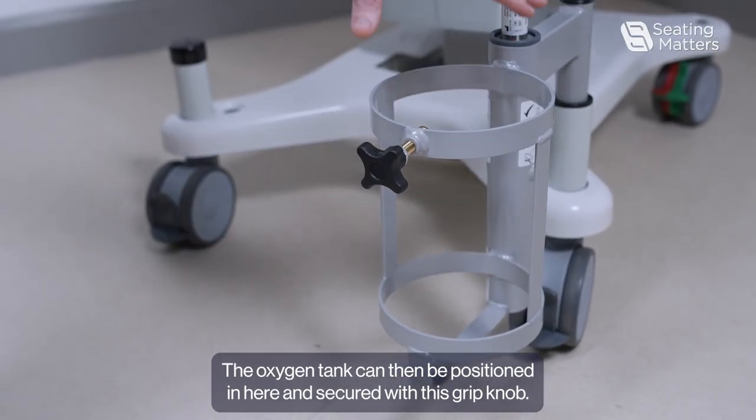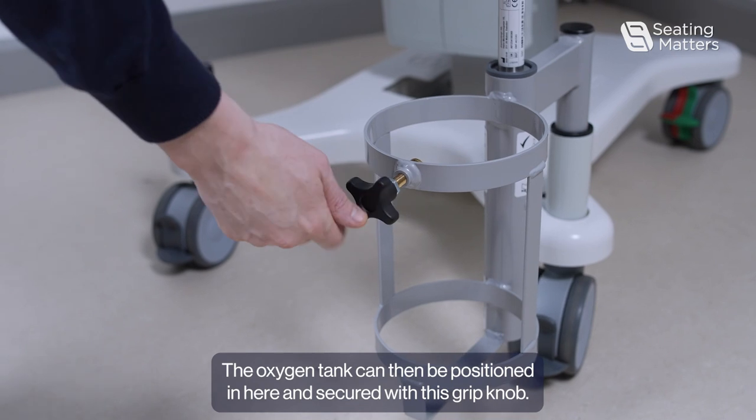The oxygen tank can then be positioned in here and secured with this grip knob.